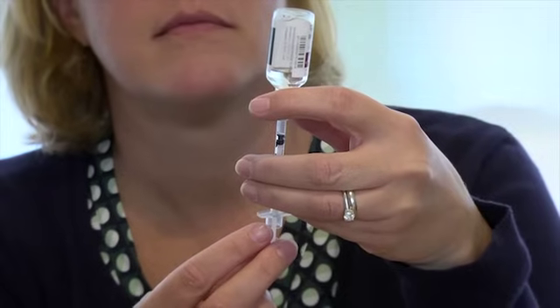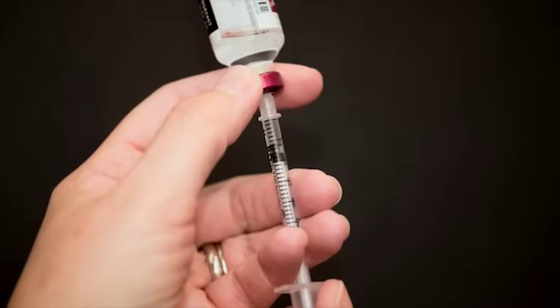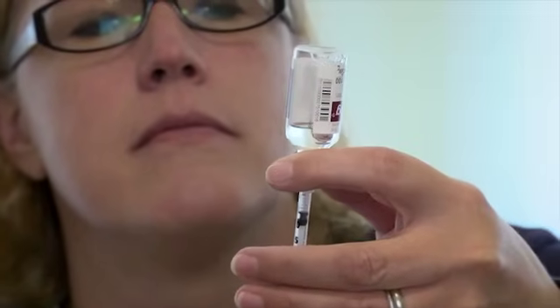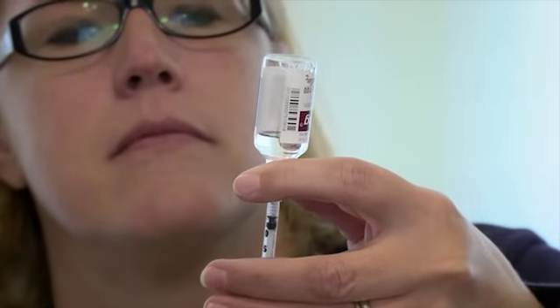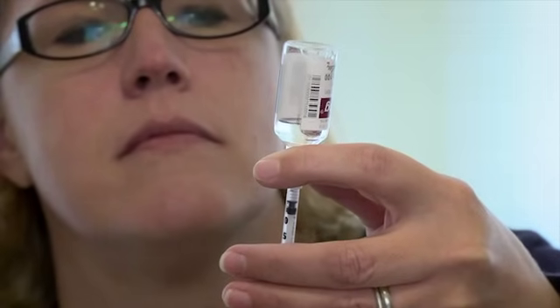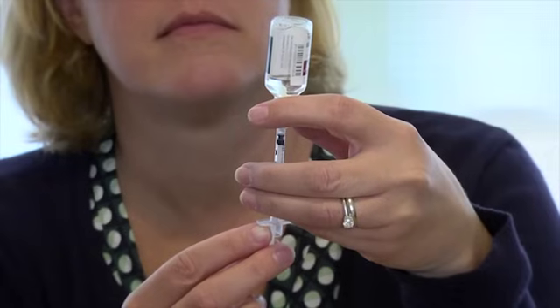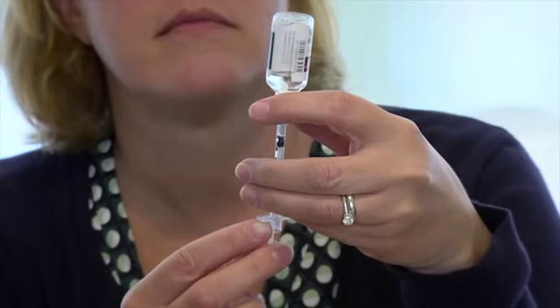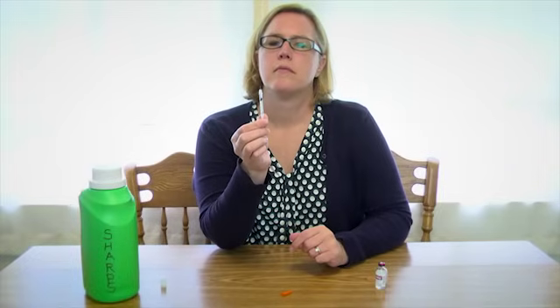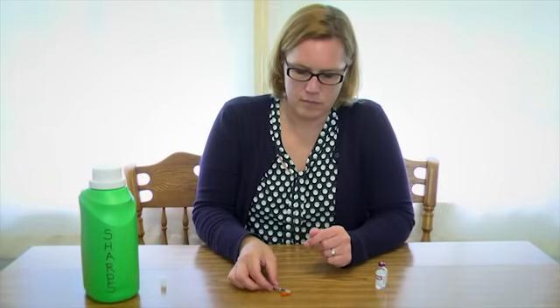Pull the plunger back to the unit mark for the insulin dose ordered for you. If you see bubbles in the syringe, gently tap on the syringe so the bubbles move to the top, then push the syringe to release the bubbles back into the bottle of insulin. Once again, with the needle in the insulin, pull the plunger back to the unit mark for the dose ordered. Check that the dose is correct, then set the syringe down without letting the needle touch anything.